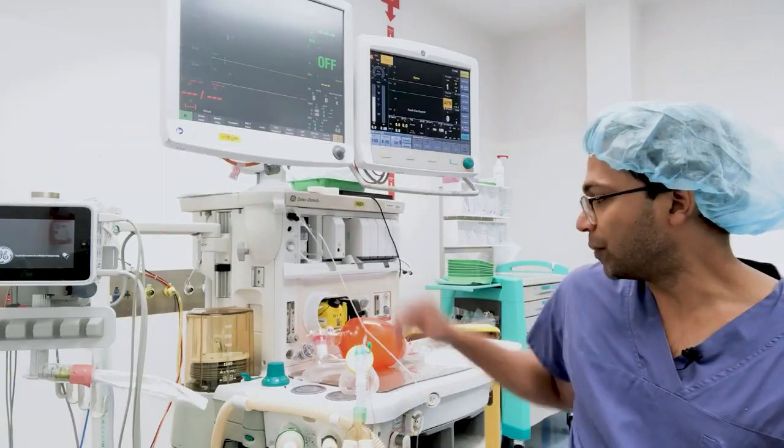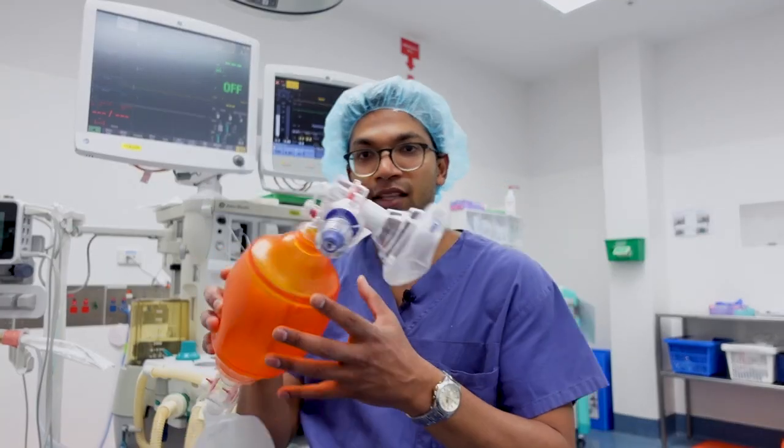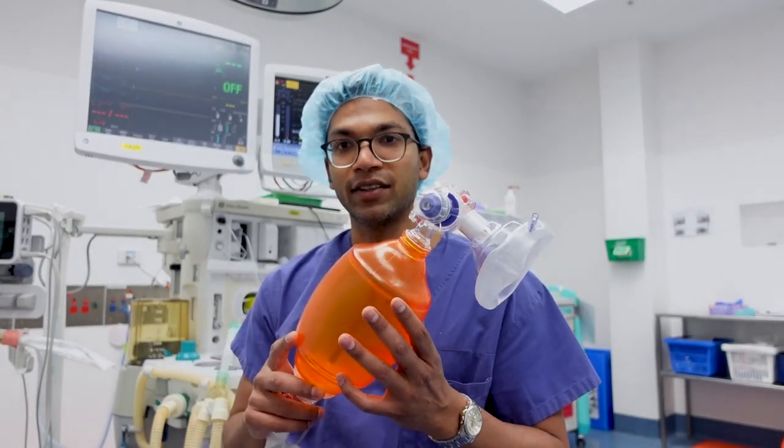One of the things we always talk about in anesthetic training is what happens if this very complicated device goes wrong. There's one simple solution: after your initial troubleshooting steps, if you simply can't find a solution, all you do is go to your Ambu bag — this device over here.